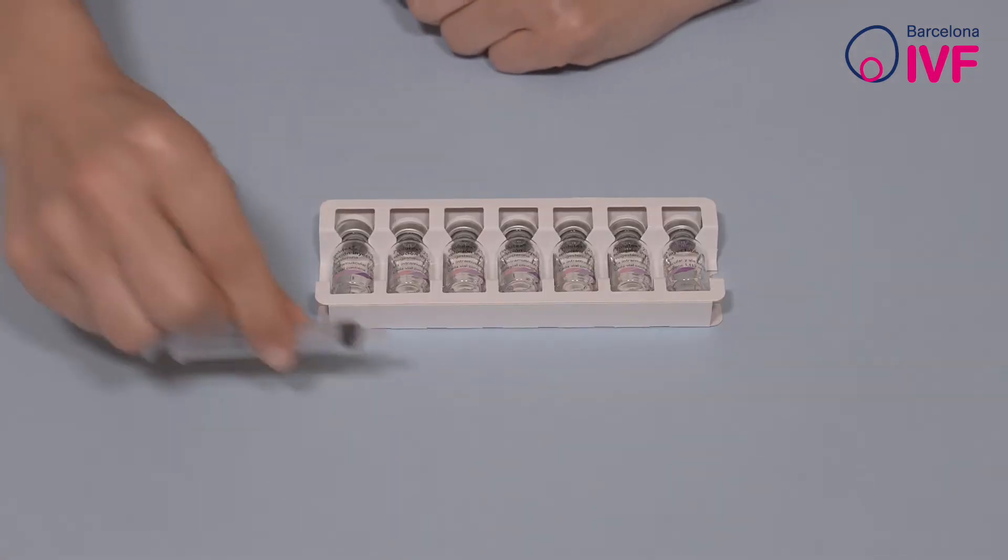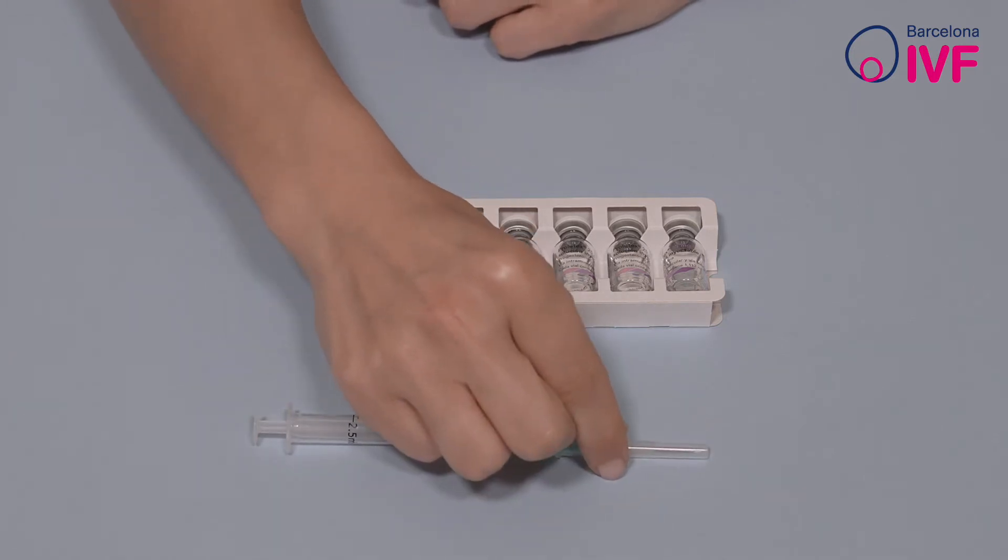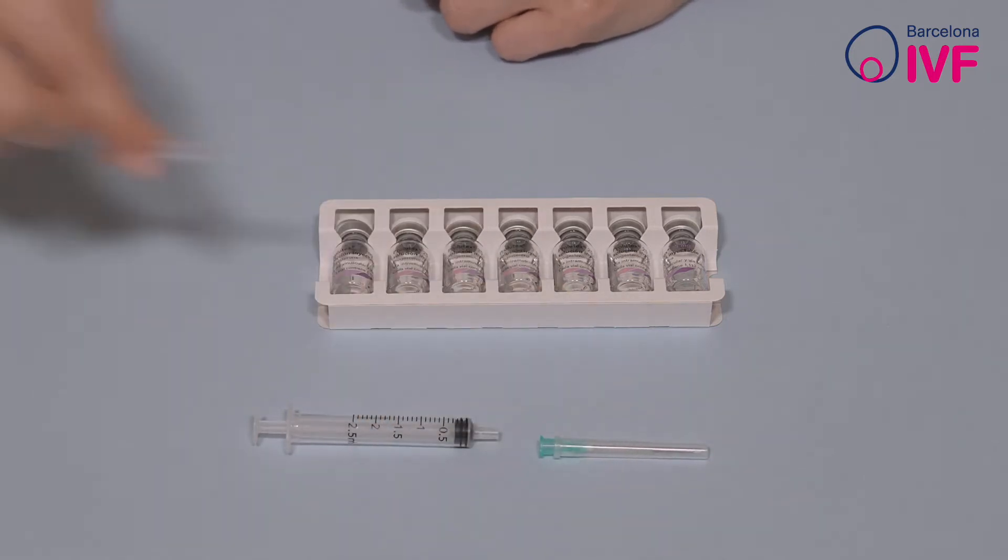You will need a 2.5ml syringe, an intramuscular injection needle, and a subcutaneous injection needle. This material does not come with the kit.